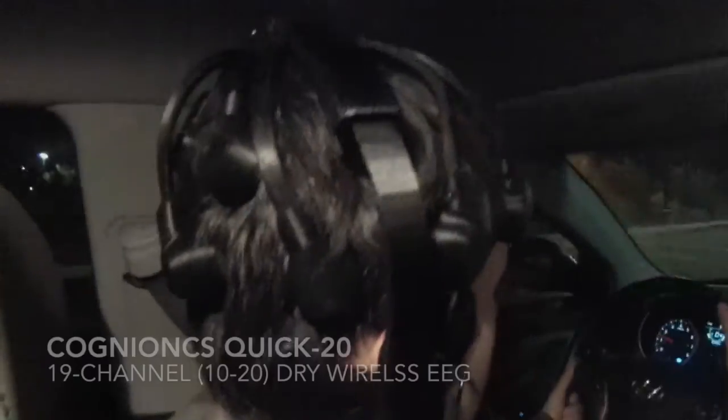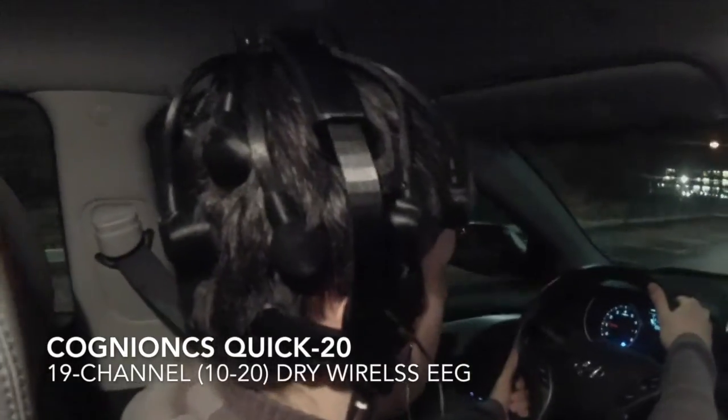This is a live demonstration of the Neuroscale platform, recording data from a dry wireless EEG system made by Cognionics and streaming it to cloud servers. We're classifying the subject's brain state in real time using a mismatch negativity paradigm — detecting whether a deviant or standard sound was played based on brain responses, all happening on the cloud via the Neuropipe computational framework.